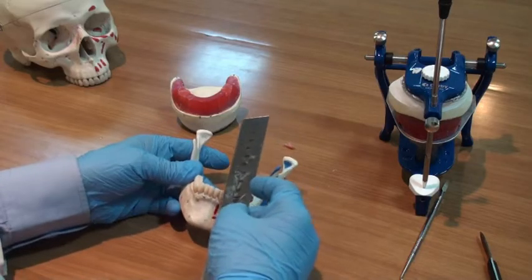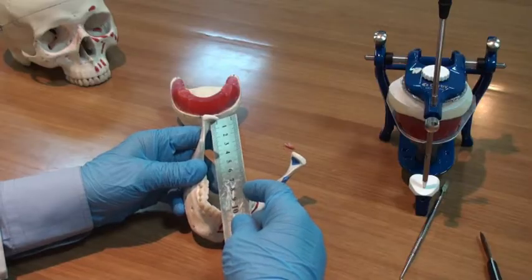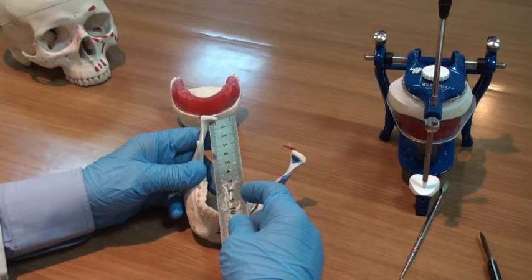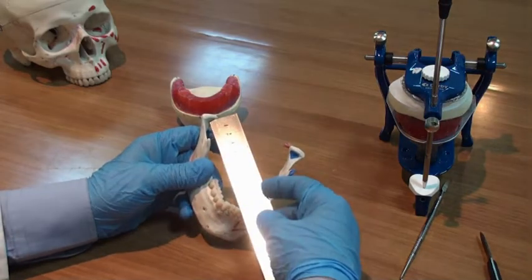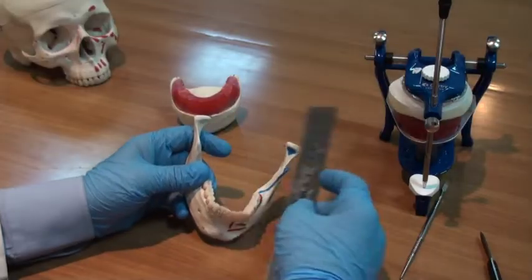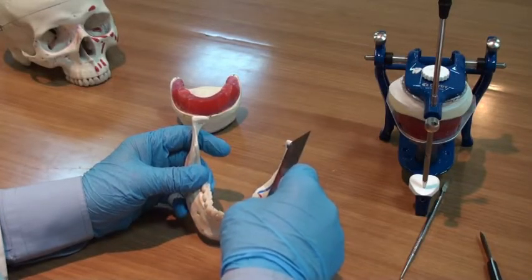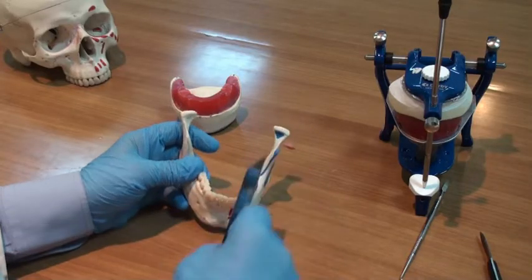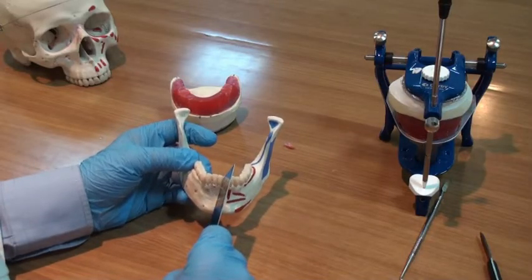And also from the contact point of the lower central incisors to the center of the condyle at the opposite side, he found the same distance of 10 centimeters or 4 inches. So we have an equilateral triangle extending between the centers of the condyles and from the center of each condyle to the contact point of the 2 lower central incisors.